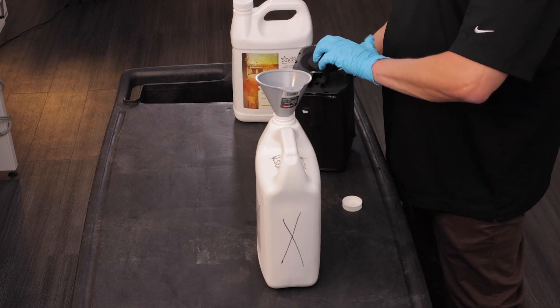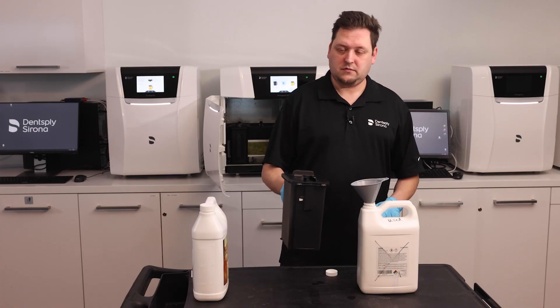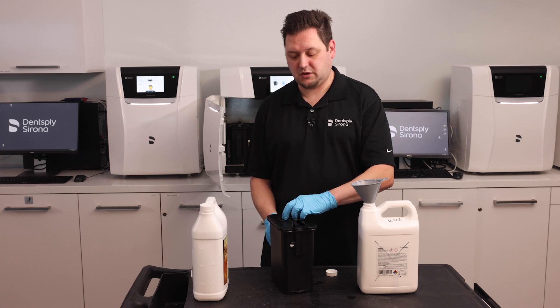I'm going to replace the lid, put it on lock, and swish it around a little bit. This helps to dislodge any resin deposits from the bottom of the container.